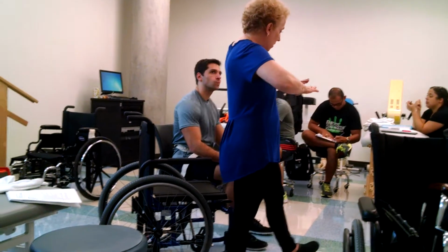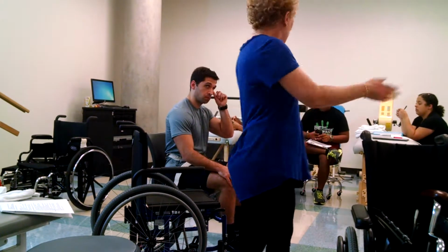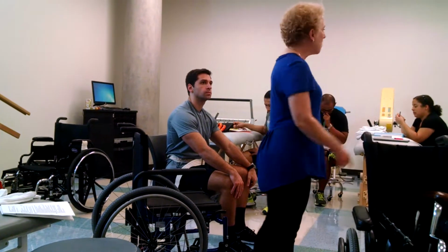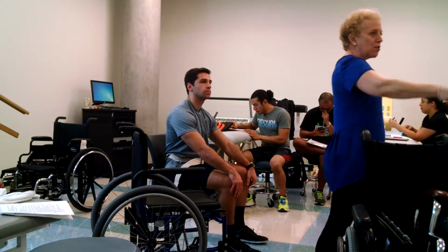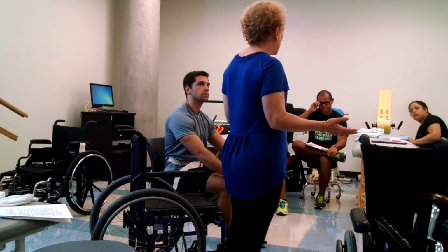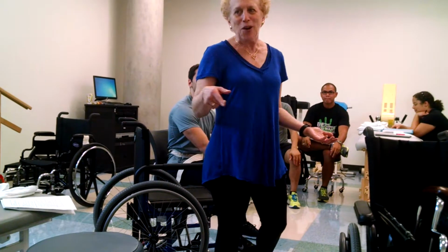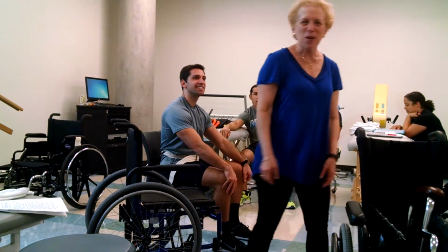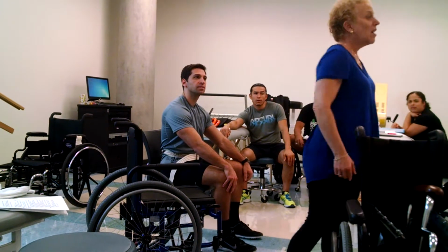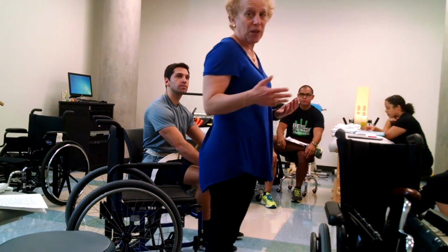And think about where the gait belt is often placed. Okay, so you're in a hospital and you go to the cafeteria for lunch. You can point out who are the PTs and the OTs, and how can you do that? You have healthier meal choices. I so wish that, but no. They all wear gait belts around their neck, around their waist. And you know, oh, that's a PT, that's an OT, because they wear their gait belts, okay, especially in acute care.